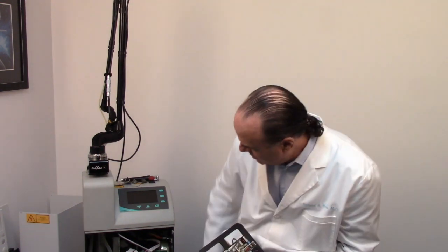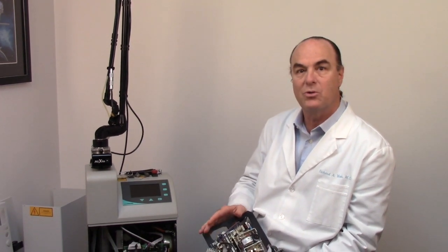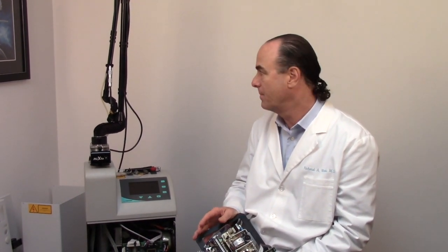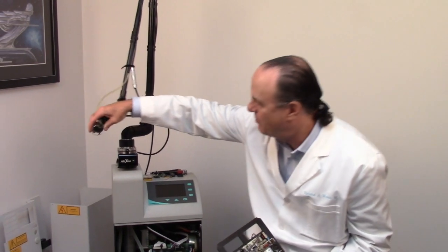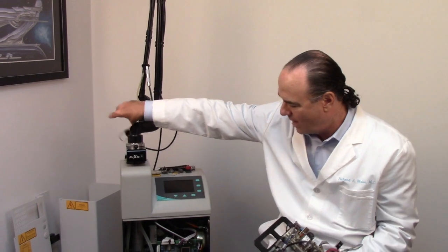All this machinery in here, much of it is used to control the direction of the laser energy. So the laser energy comes out over here and that's what people see in the office, but let's peek inside the laser and see what we have.